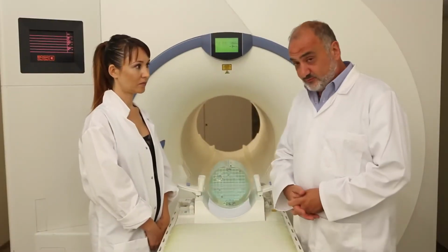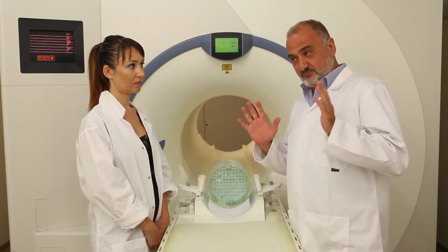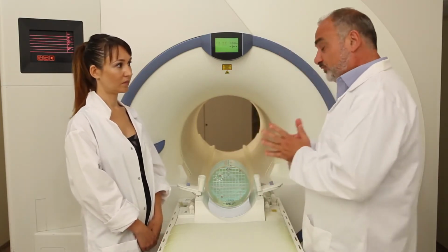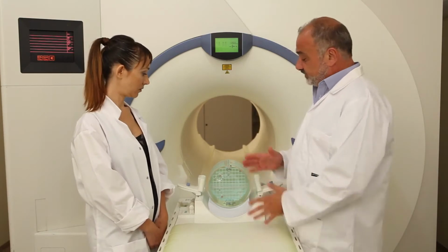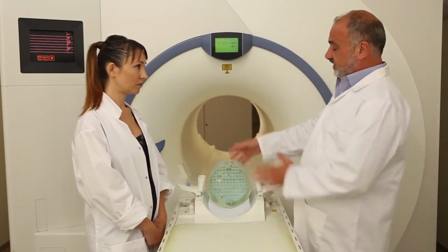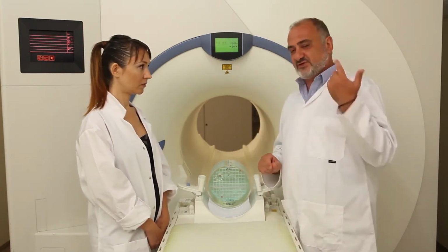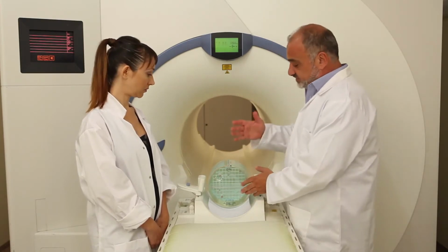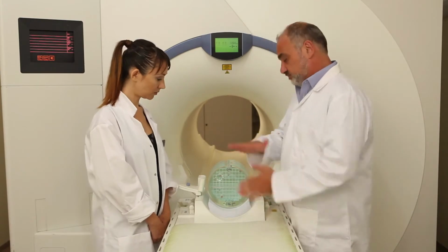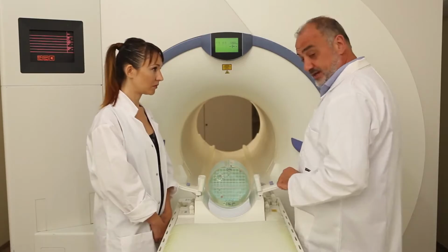So practically what we have to do is to coincide 4 different points in space in 1 point in space. These 4 points are, again, the center of the anatomy, the center of the phantom, the center of the coil, the isocenter of the magnet, and the center of the scan. Under this rationale, the first thing we have to do is to position and find the center of the scan.